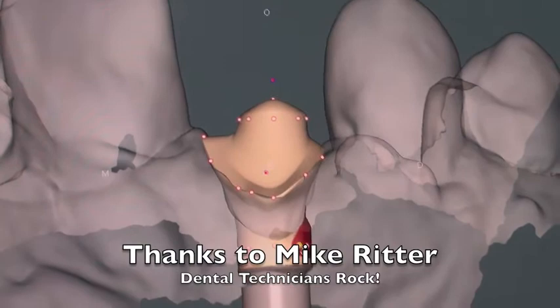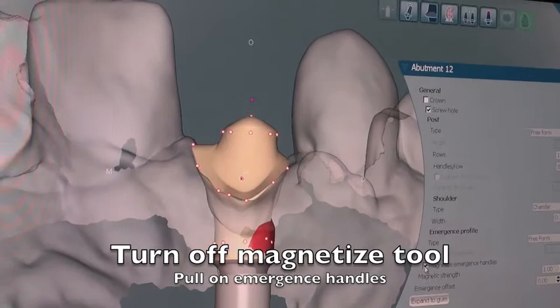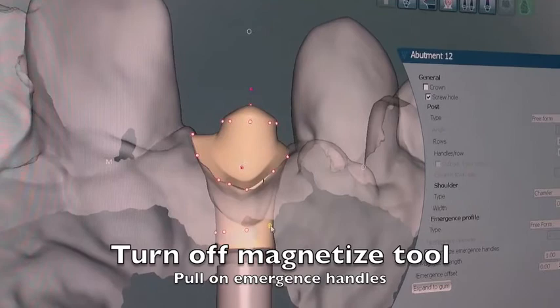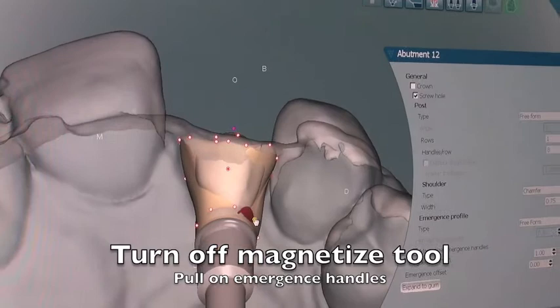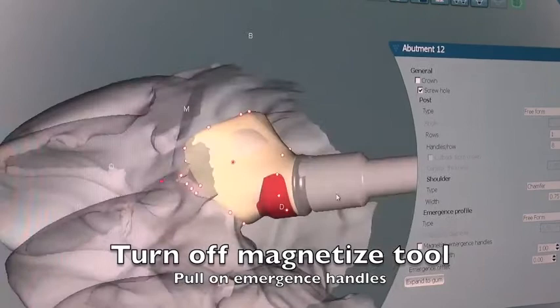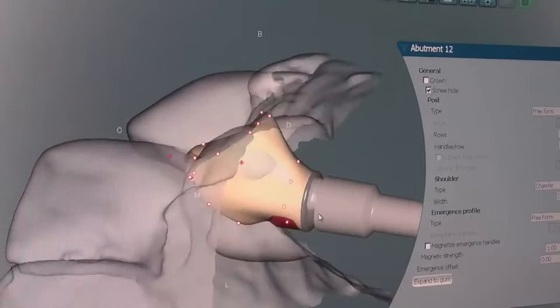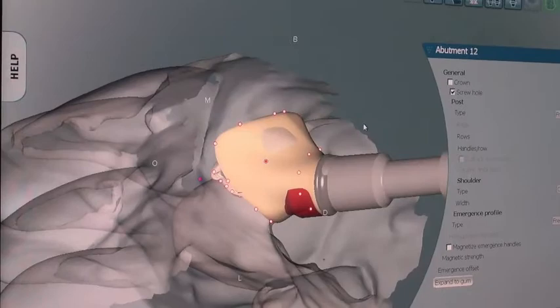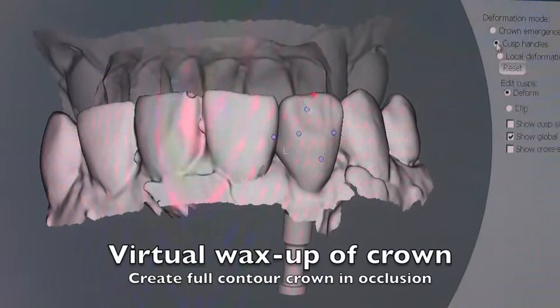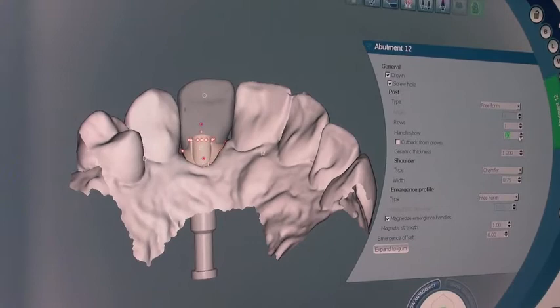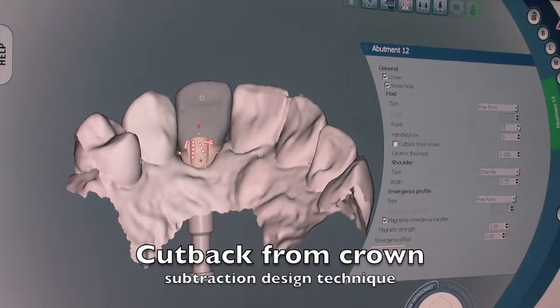Now the technician Mike can start to do a little bit of his own modifications. He can turn off the magnetized tool and start to create a little bit himself. If you're using a standard stock impression coping you'll have to use this feature to create some emergence so that when the crown goes in you're going to put some pressure on the tissue — the patient will kind of feel that. But if you use customized impression copings and customized temporaries, you won't have those issues and the bone responds so well. Once we have the emergence profile dealt with below the tissue, we can use the computer tools to design a crown — what's called a virtual wax-up — pushing and pulling points on a computer, designing a perfect crown shape, then using this to make our final abutment.